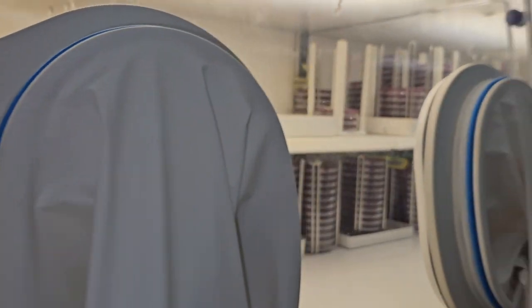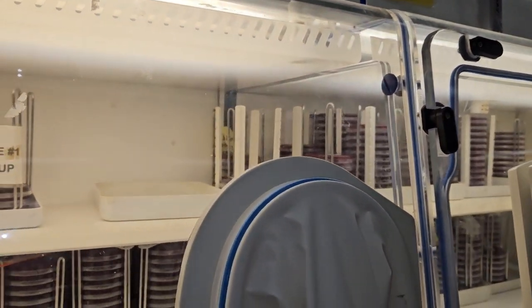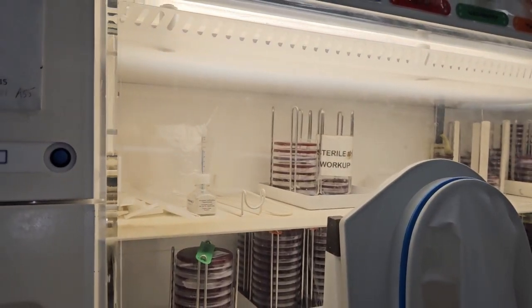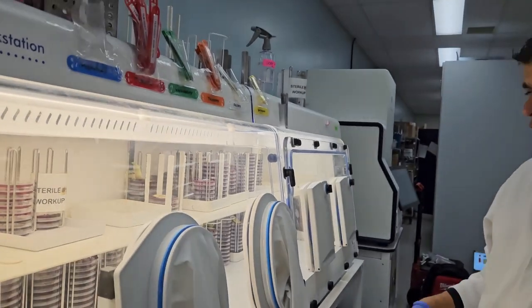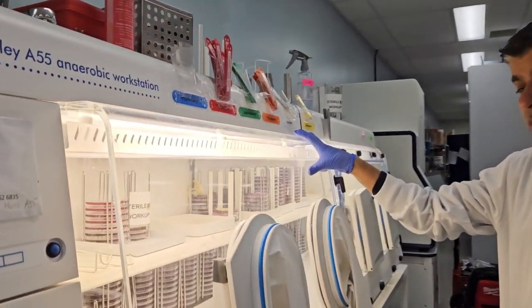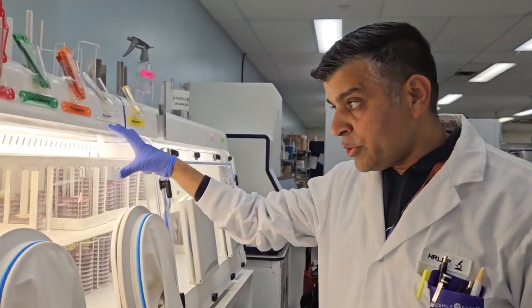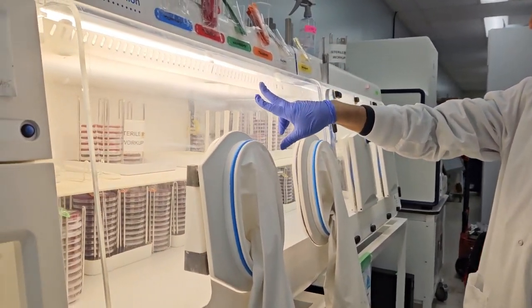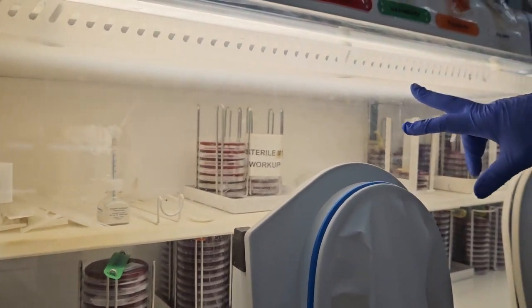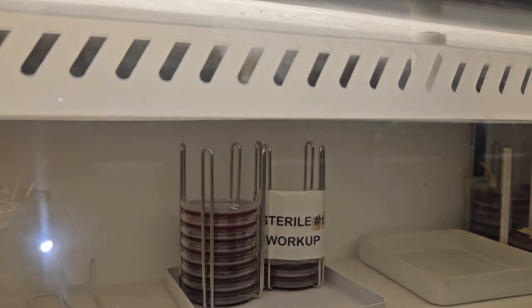You can see plenty of plates inside. Because we keep them for 5 days, they are organized by the day. Day 1, day 2, day 3, day 4, and day 5, and the techs would come and read them every day. In order to check that anaerobic conditions are actually maintained, we do some QC every day. You can see some of the QC plates as well as the anaerobic QC strip, which has turned white, indicating that it's keeping anaerobic conditions.